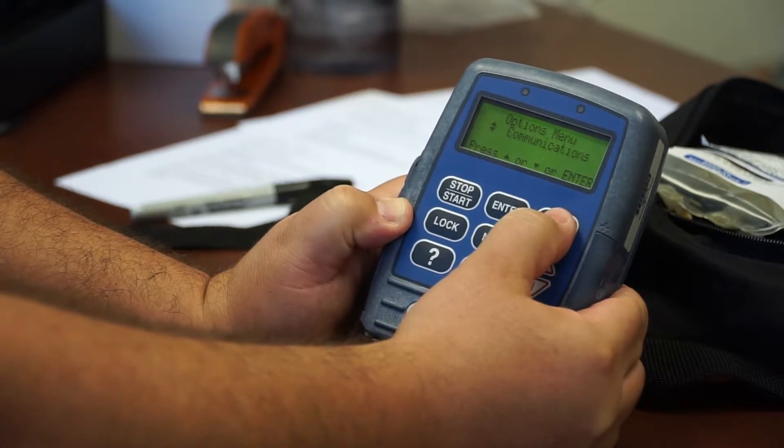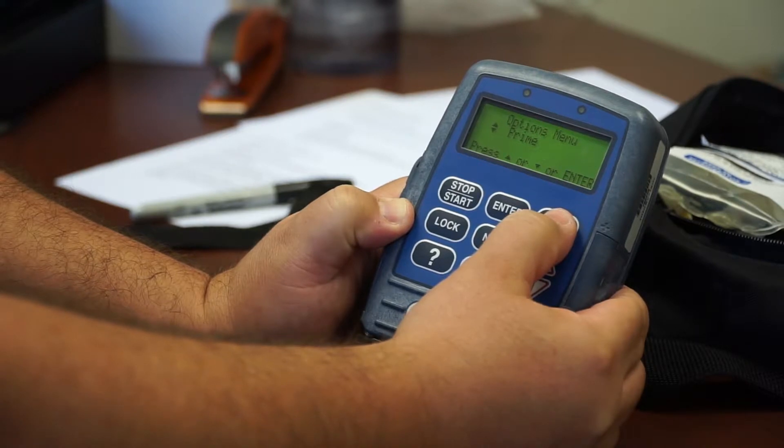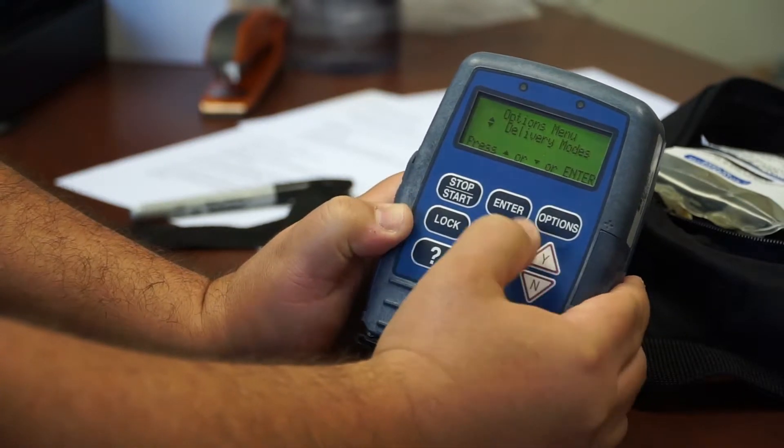Event log, communications, biomed toolbox, prime, delivery modes. Once you hit delivery modes, you hit enter.